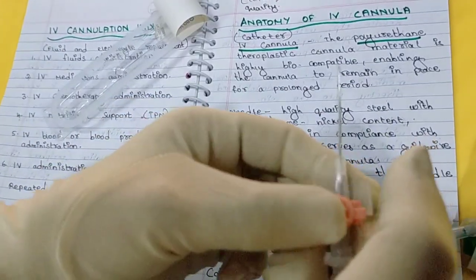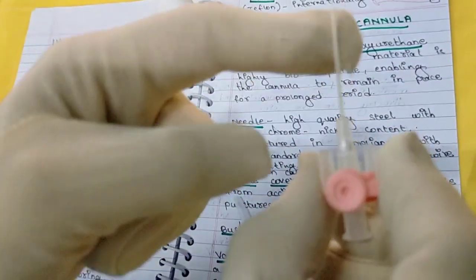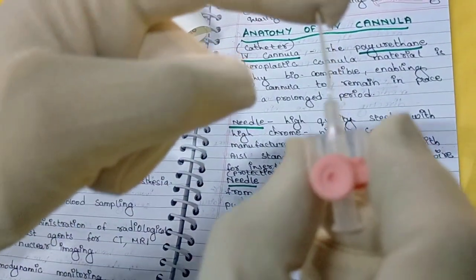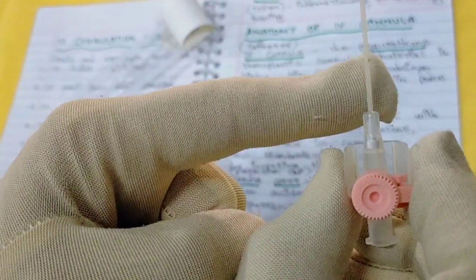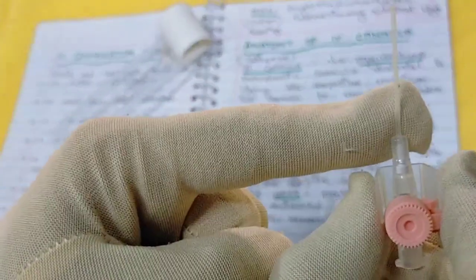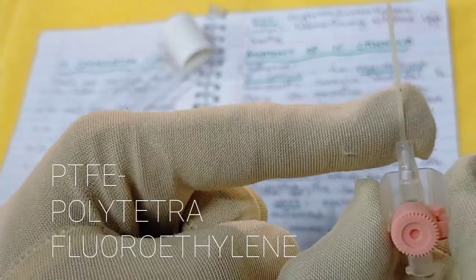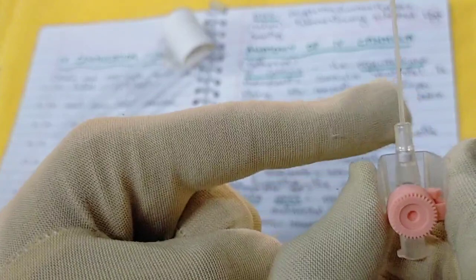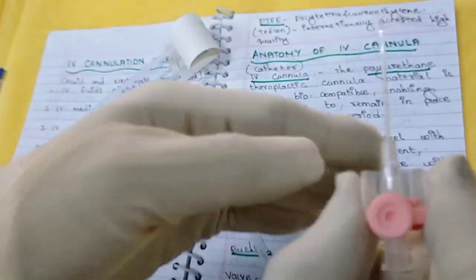Then if you separate the parts, we have the cannula catheter — the catheter tube — which is thin, small, and flexible. It is made up of polyurethane thermoplastic material, which is highly biocompatible, or it is made up of PTFE, that is poly-tetrafluoroethylene, also known as teflon. It is an internationally accepted high quality material. This catheter can remain in place in the vein for a long time — at least 72 hours.